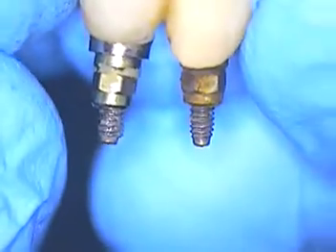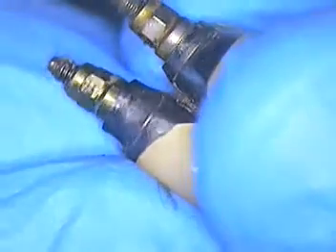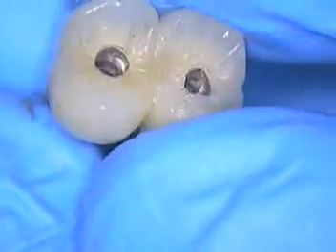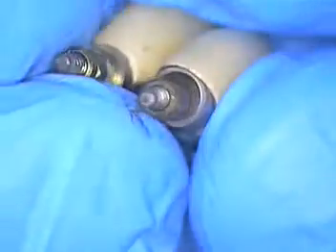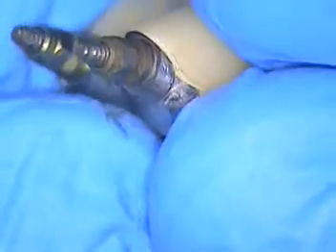We definitely have a path that are going in two different directions. What we also see is a little different design from one to the other. One is actually a little further in on the mesial — that would be on number 14. It's a little bit longer and 13 is a little less. There also is a modified ridge lap encountered on the one on 13 as well.